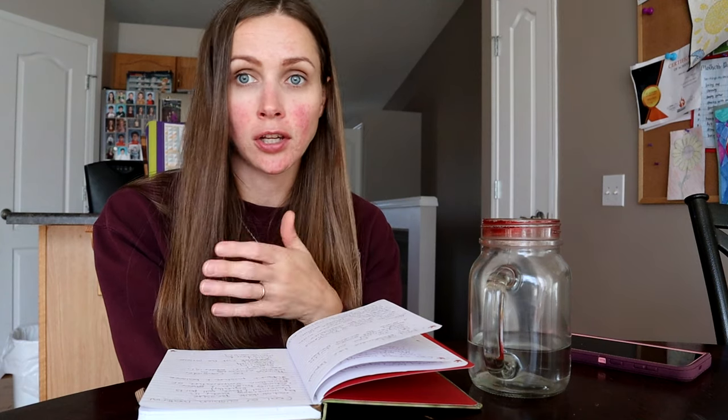Those are the goals of the cushion and its material. Things to consider when getting a cushion include: how much support you need, how heavy you are — because that affects which cushion materials are appropriate — the stability you need, and the durability of the cushion. So how hard are you on your cushions? Are you likely to pop an air cushion? If you need something durable, you need to take that into consideration — for somebody like me, durability is extremely important.